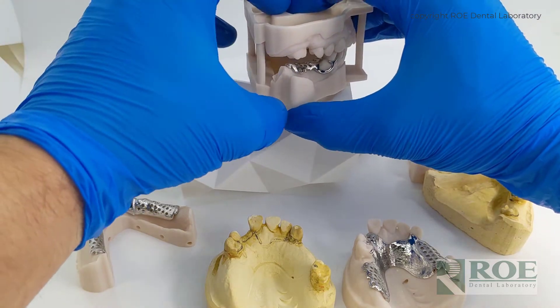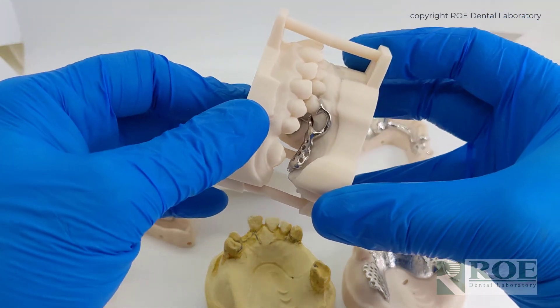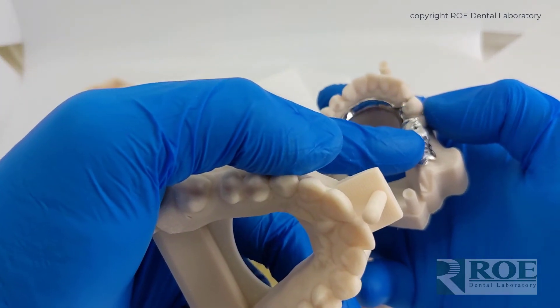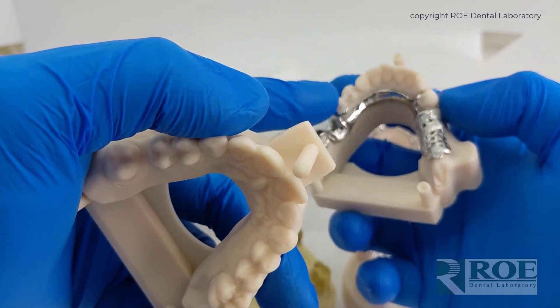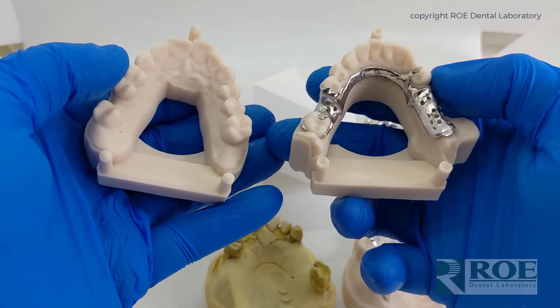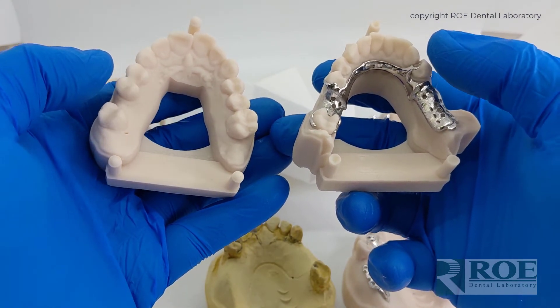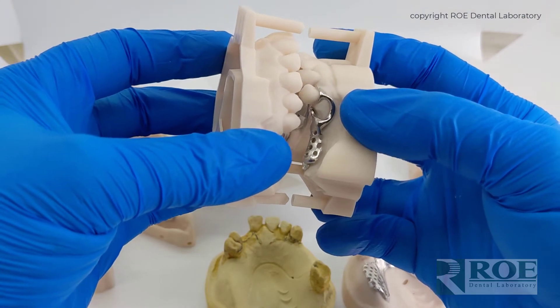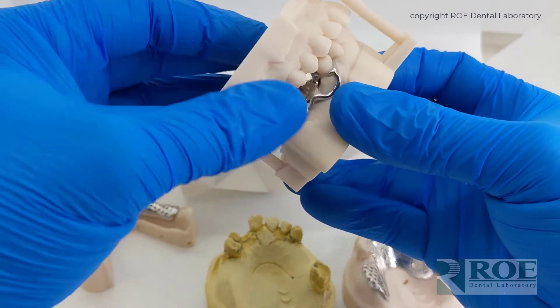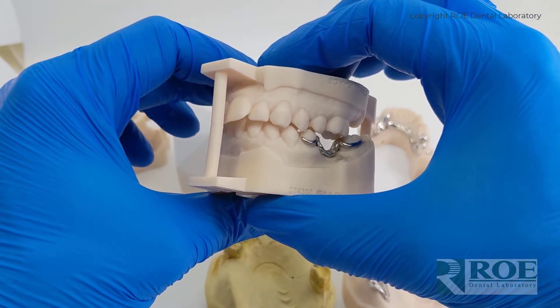It is critical, though, that great care is taken to scan the patient, because often with free end saddles or large areas where there is tissue, scanners can get lost and confused because of the shiny surface. So just be very cautious when scanning and evaluating your scans that the impression was taken perfectly.